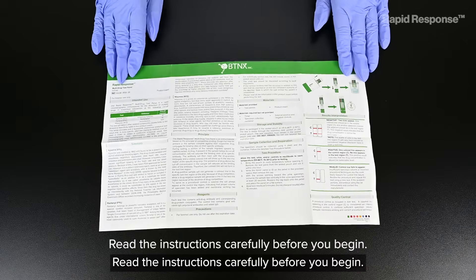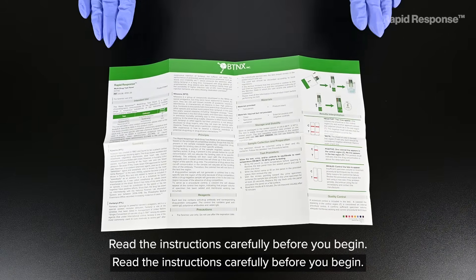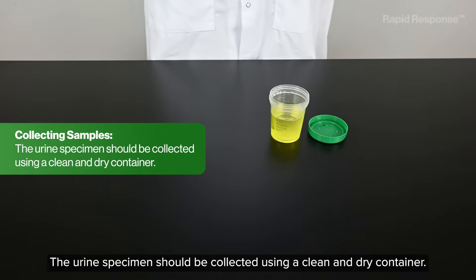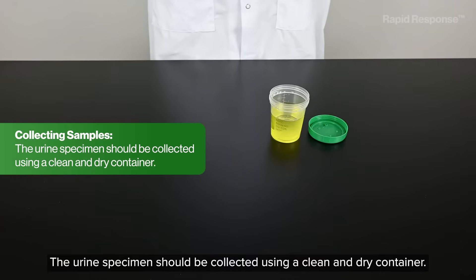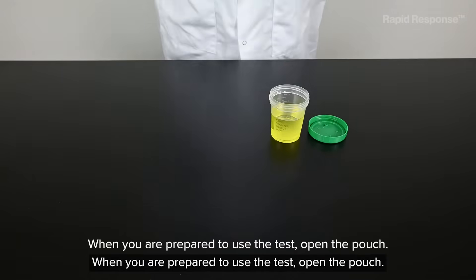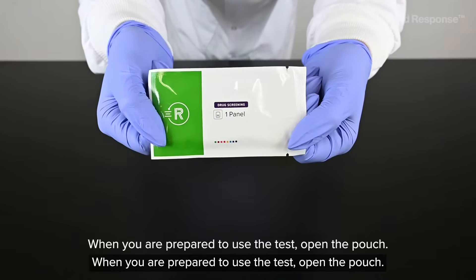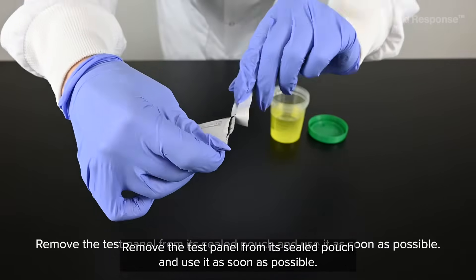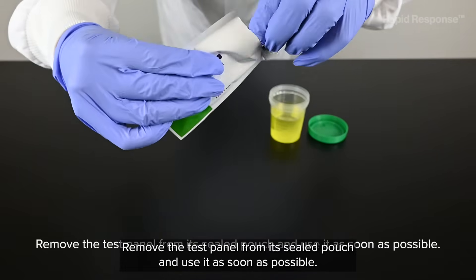Read the instructions carefully before you begin. The urine specimen should be collected using a clean and dry container. When you are prepared to use the test, open the pouch. Remove the test panel from its sealed pouch and use it as soon as possible.